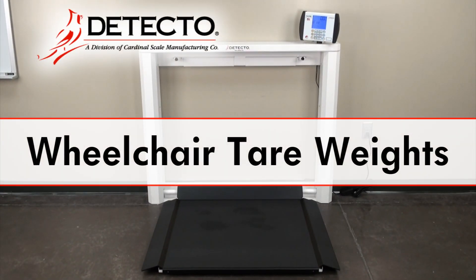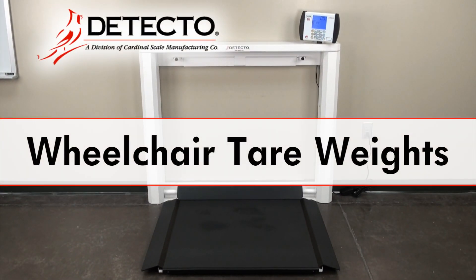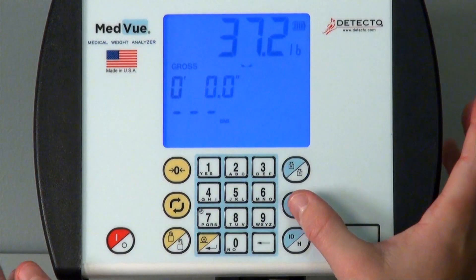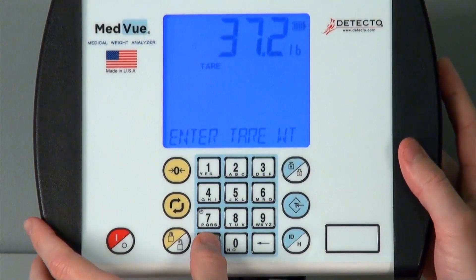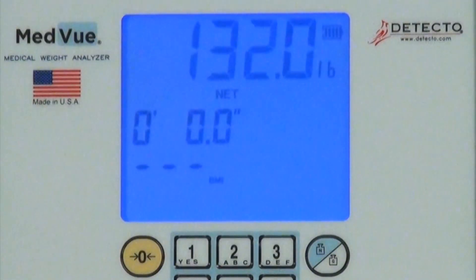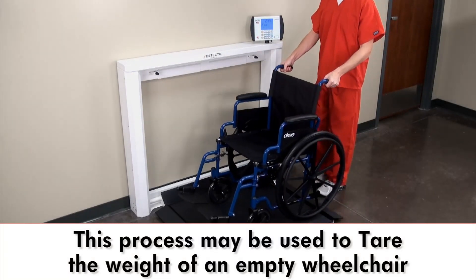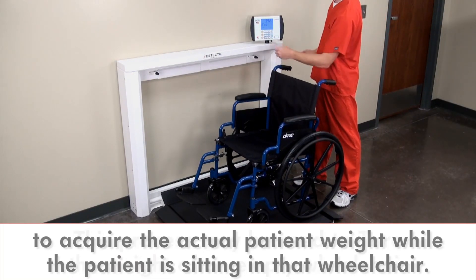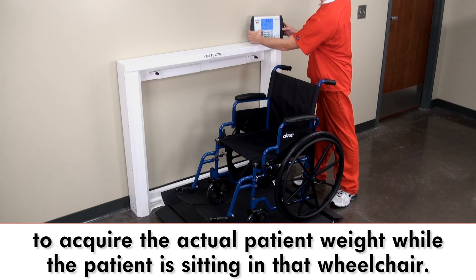The 7550 wheelchair scale offers multiple ways to tare the weight of an object. The tare process removes the weight of that object from the gross weight, leaving you with the desired net weight. For example, this process may be used to tare the weight of an empty wheelchair to acquire the actual weight of a patient while sitting in that wheelchair.